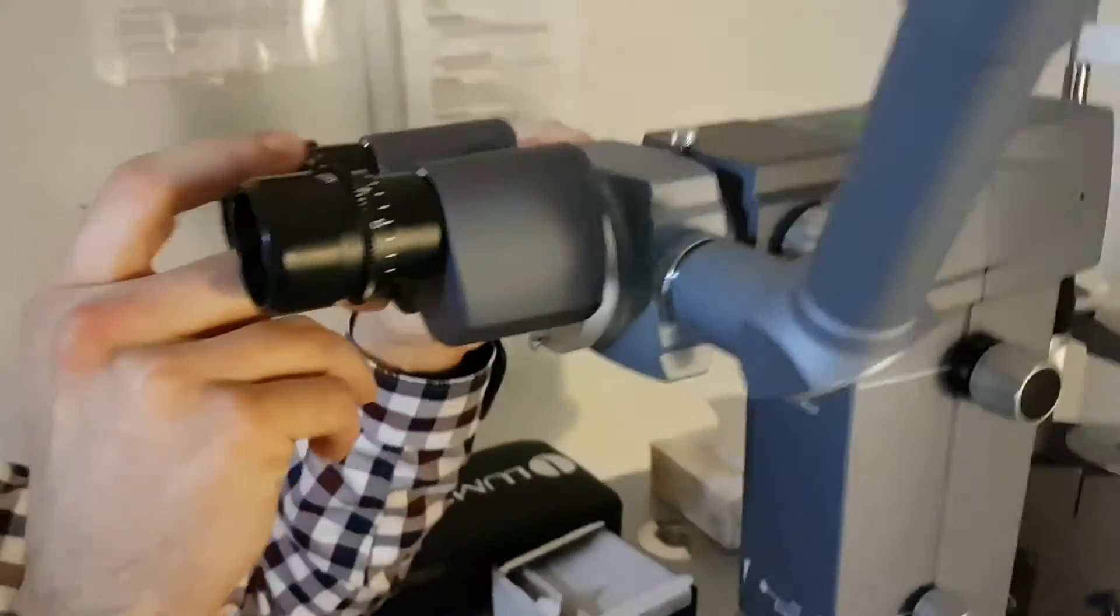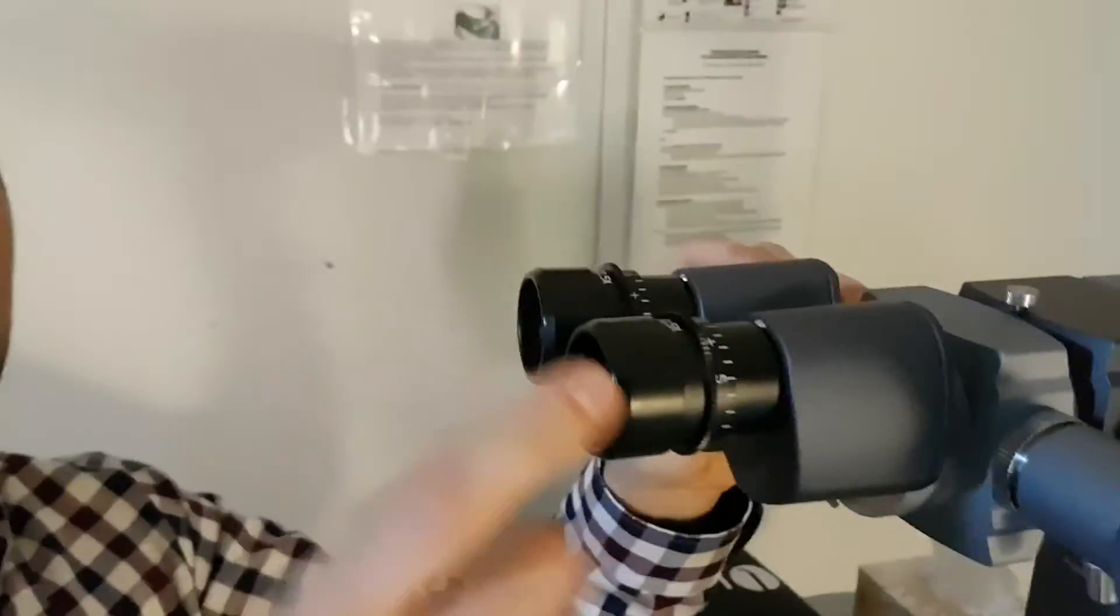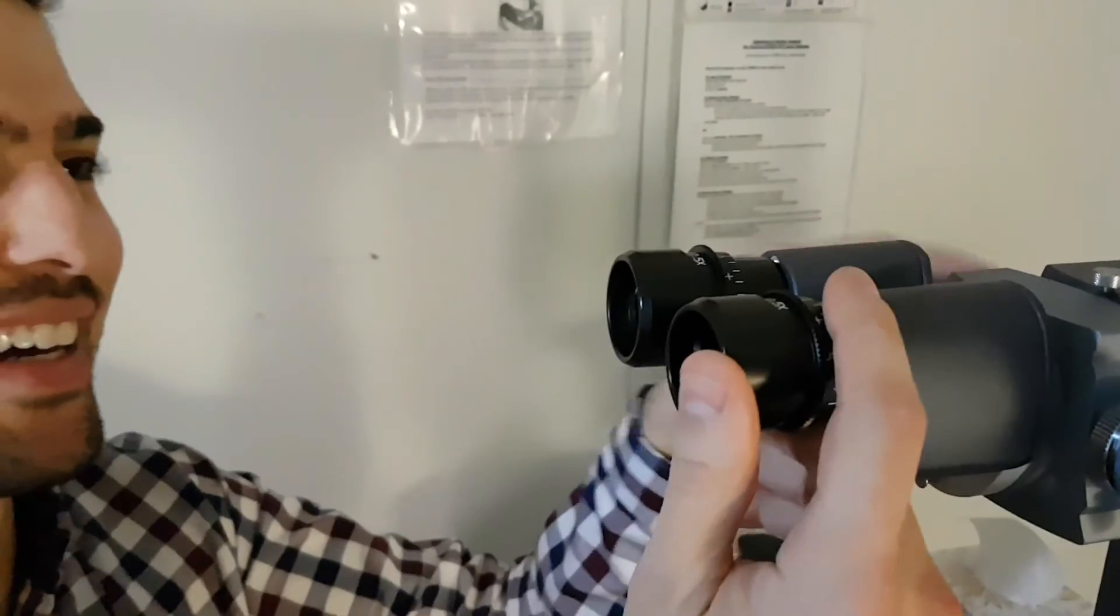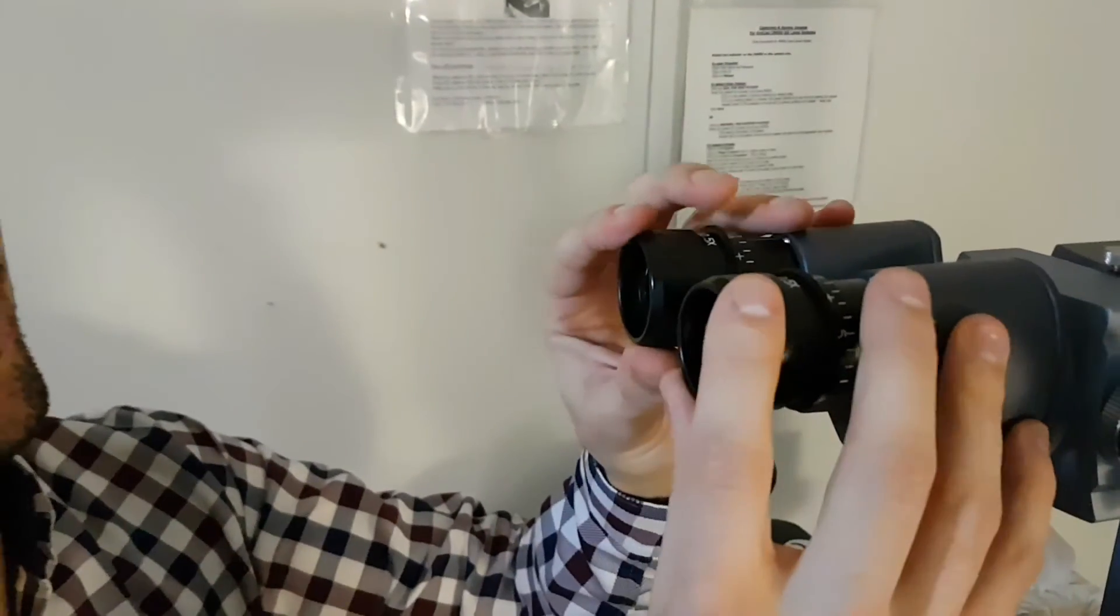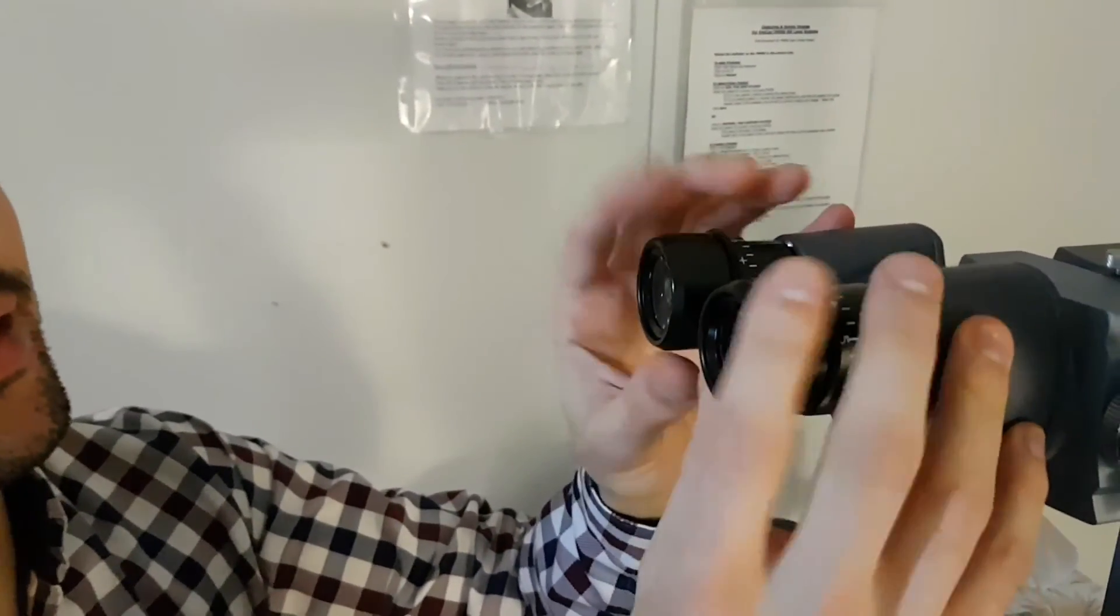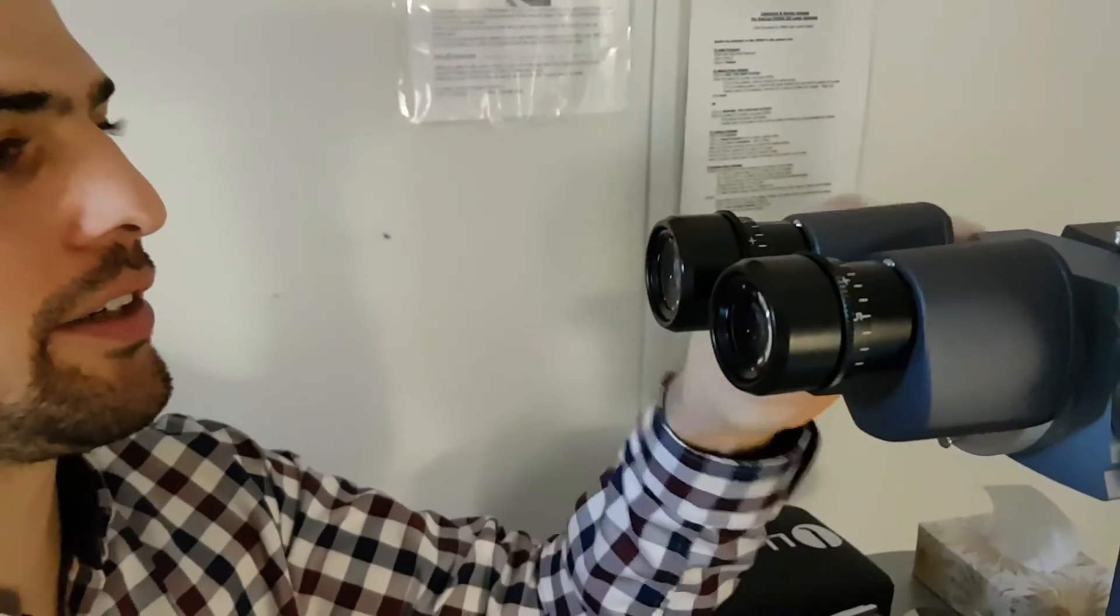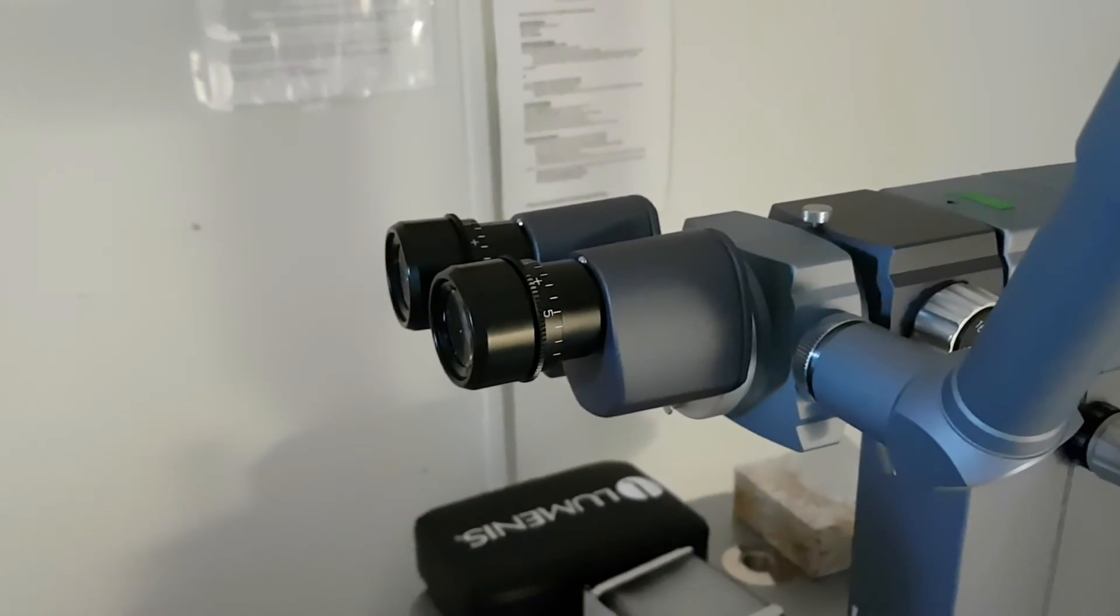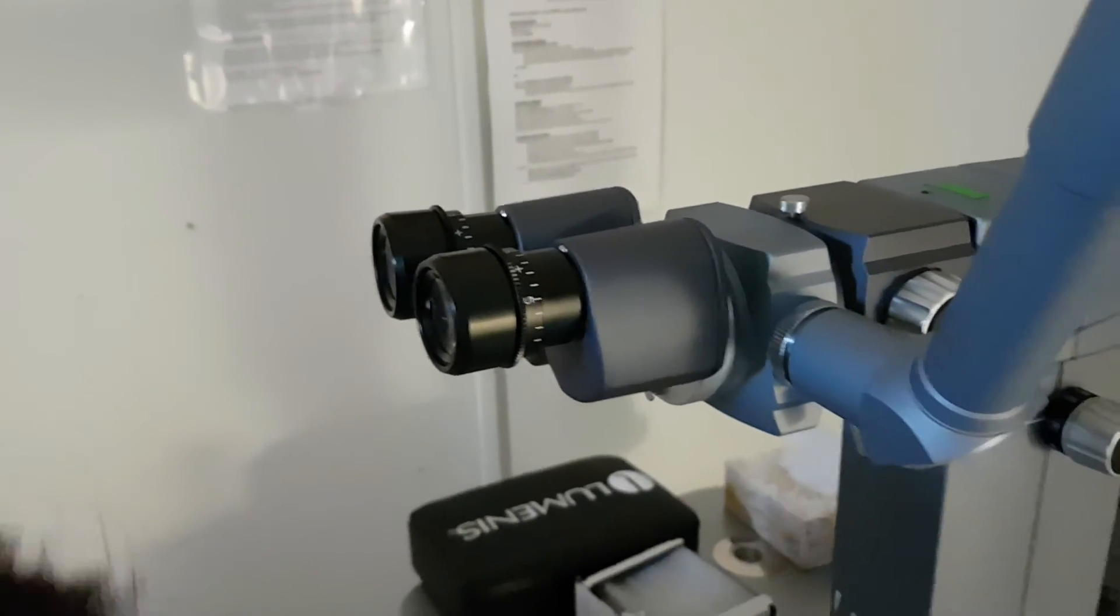Other than that, if you wear mascara, you should probably use the little shades here. And I think this pretty much covers it all.